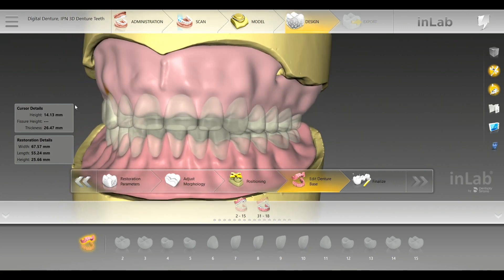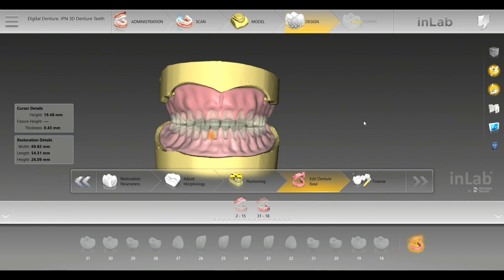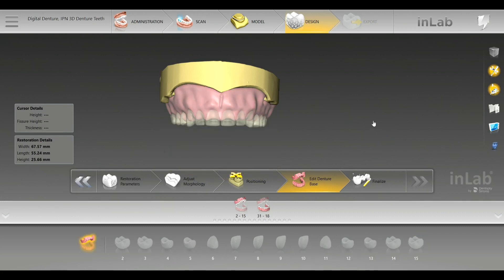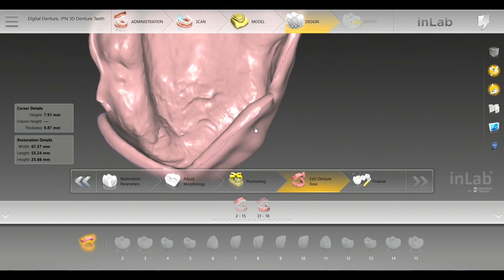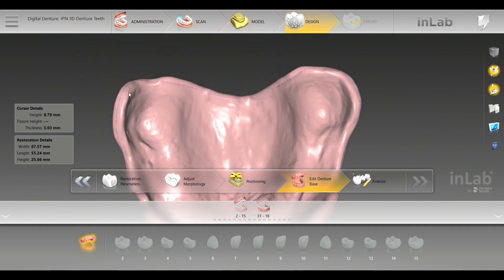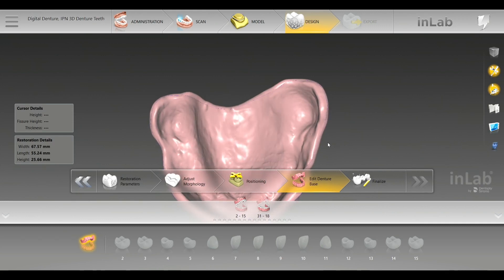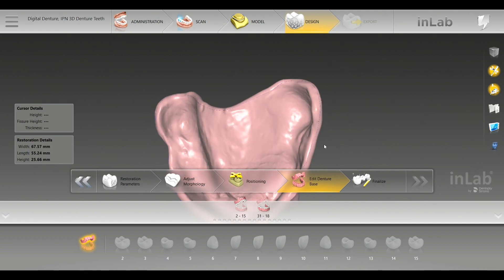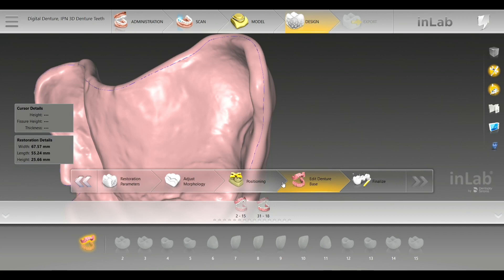You just want to make sure you have equal thickness. I'm going to show you why I drew those lines a little bit longer in the vestibule. You can still see the lines — all that did was give me a thicker base inside, so you can see how thick this area is. It creates a thicker base. You don't want to put it just necessarily in the deepest part of the vestibule — extend that. You can always shorten it, but I would go ahead and create it a little bit farther, not just at the deepest part of the vestibule.